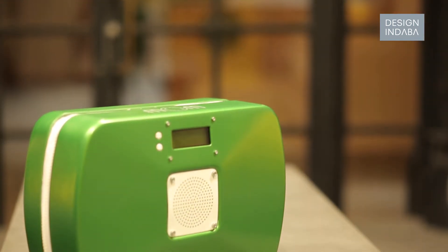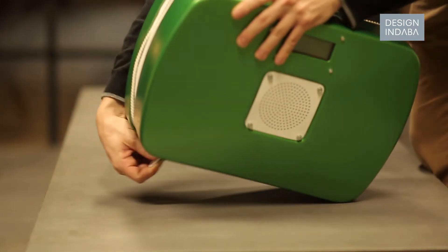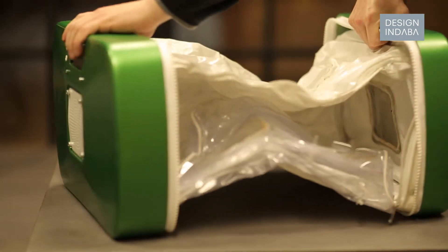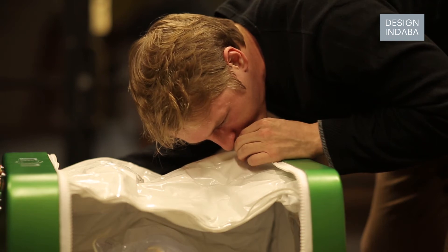The Mum Incubator basically comes in a flat pack, almost like two shelves. The idea is that you could put it into care packages for charities originally, but it's very cheap to air freight or sea freight because the size and weight are so low. So the idea is you get it to the hospital where it needs to be.